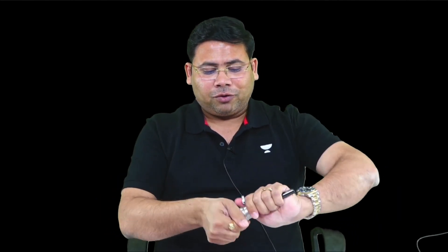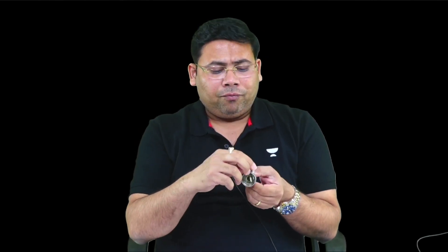Let me tell you about the parts of this cannula. There is a valve here. The significance of the valve is: when the instrument is going inside, the valve opens. If there is no valve, the air will exit out. To prevent loss of pneumoperitoneum, this valve is there. We have magnetic valves and bearing valves.